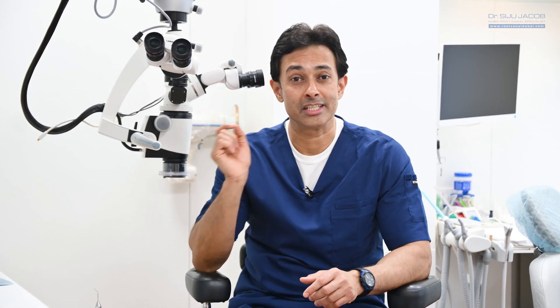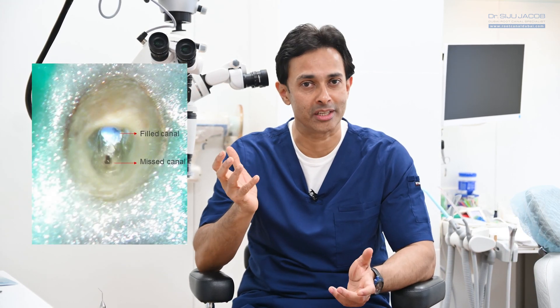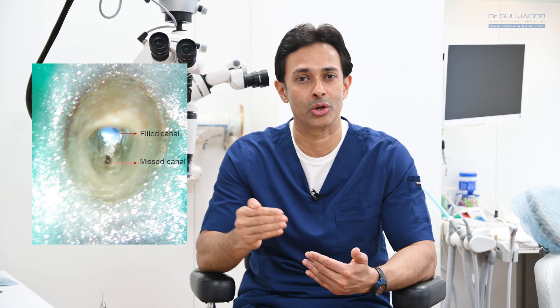Now most root canals are even tinier than this single hair follicle, and if you aren't using a microscope, you have a very high chance of missing a lot of anatomy. And missing a lot of anatomy means long-term failure, because if you can't see it, you just can't treat it.